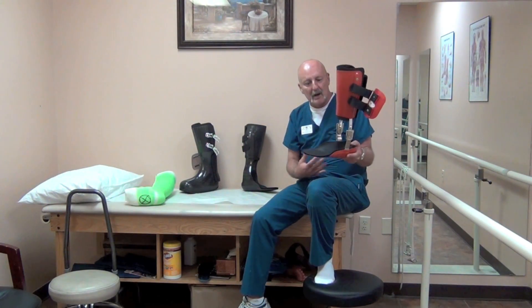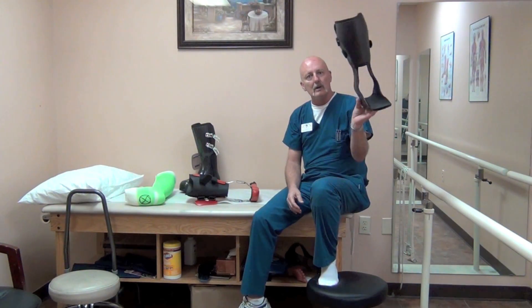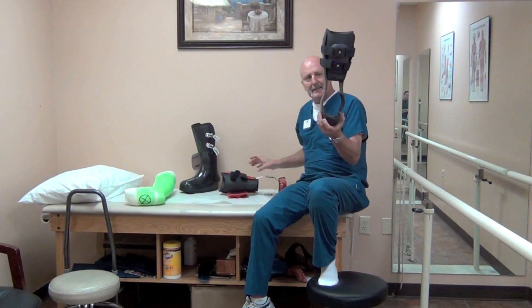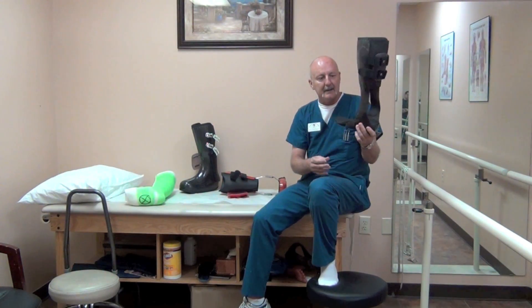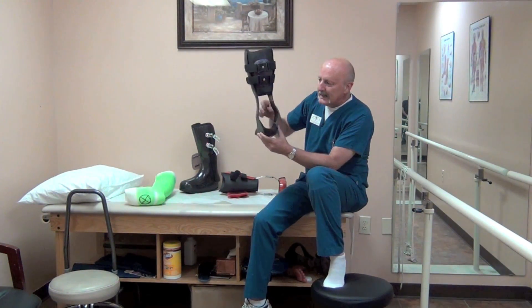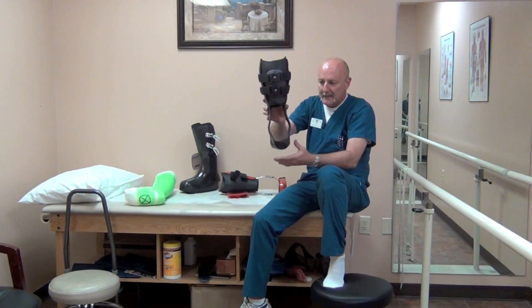This is somewhat heavy, so if a patient is unable to tolerate or carry this amount of weight, we have an ultralight version that's all carbon fiber and weighs less than half of this. The drawback is that it's not adjustable for angulation, so we have to get it right. Also, the opening has to be as wide as the forefoot so that the patient can get their foot through to don the brace.